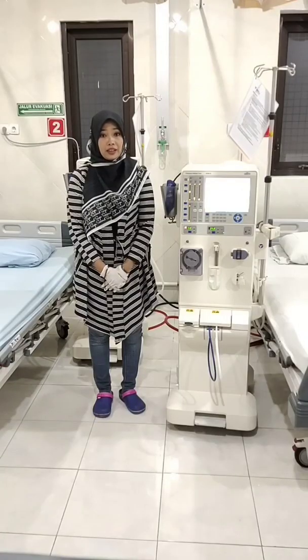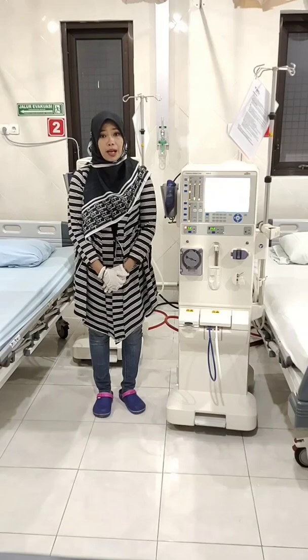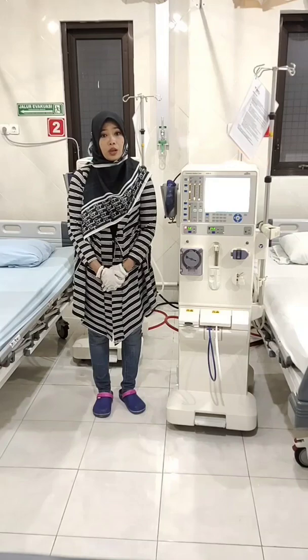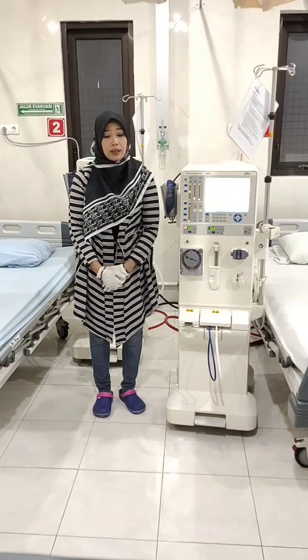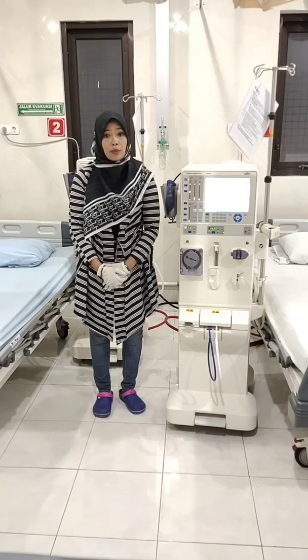This is my presentation about the hemodialysis machine: the definition of the hemodialysis machine, hemodialysis machine parts, how to operate the hemodialysis machine, and maintenance of the hemodialysis machine. Hopefully, this material can be useful for me and also all of us who listen. That is all the video I made. If there are mistakes in words or behavior, I apologize profusely.